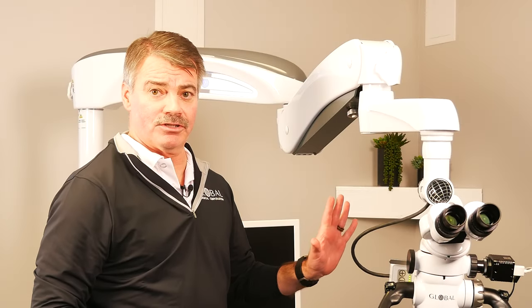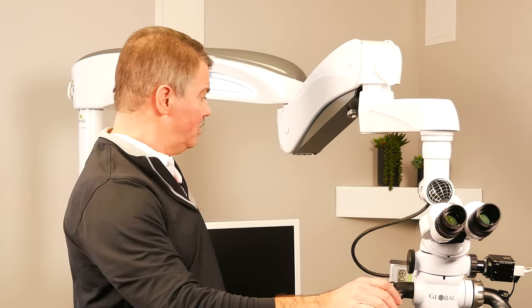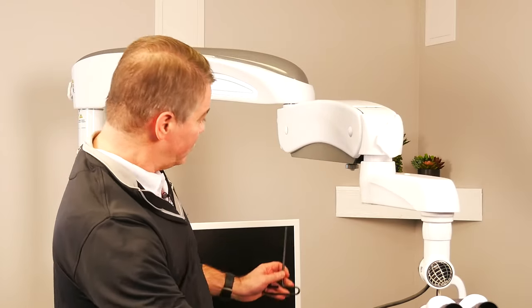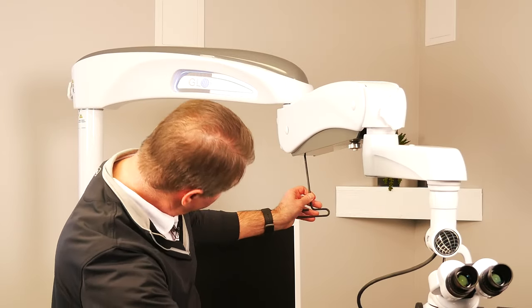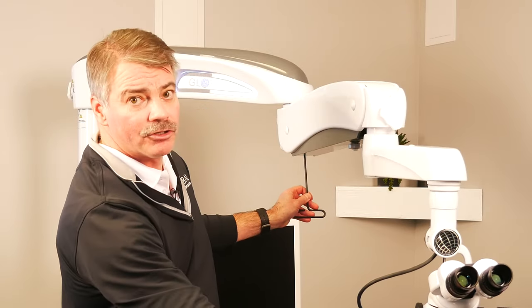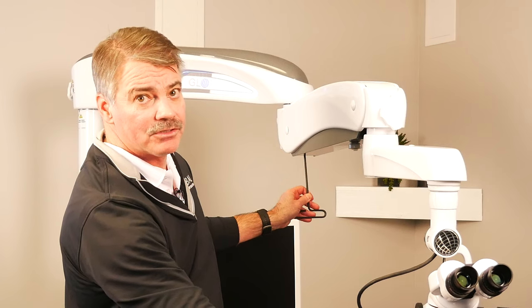Another important feature of the arm system is the ability to balance it. To do that, simply hold it parallel to the floor, insert the allen key, and turn it left or right until it balances.